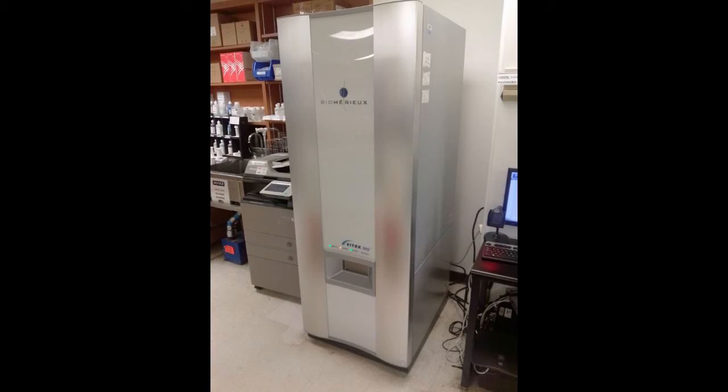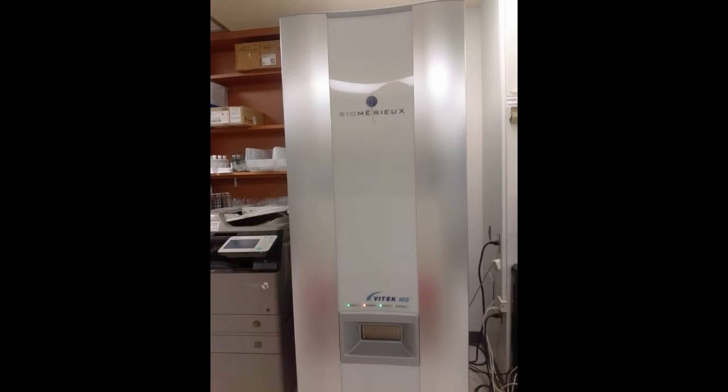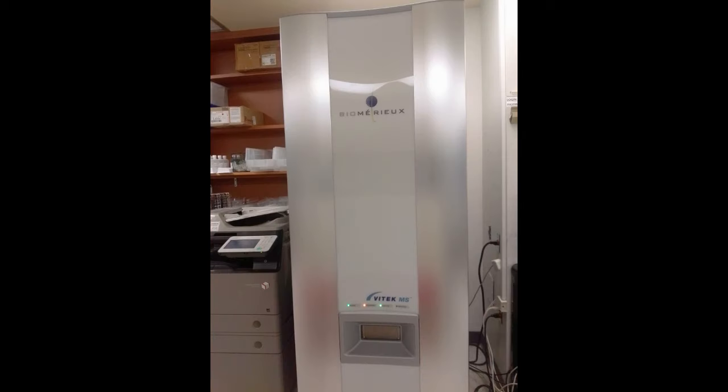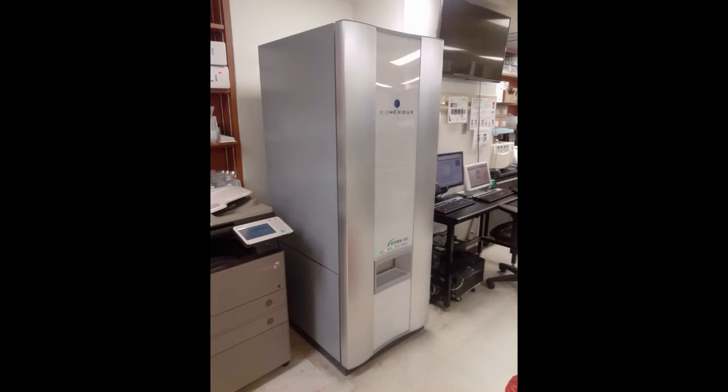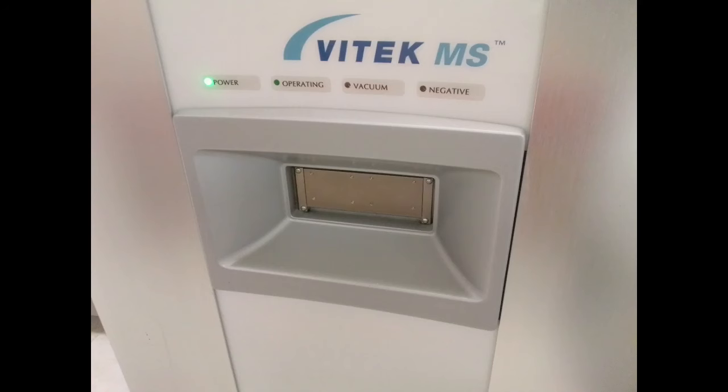Hey everyone, this is Dylan here and today I'm going to go over the MALDI-TOF. The MALDI-TOF is an identification system we have in the micro lab that allows for rapid identification of bacterial and fungal isolates. This is a picture of it here and it's very cost effective and rapid.